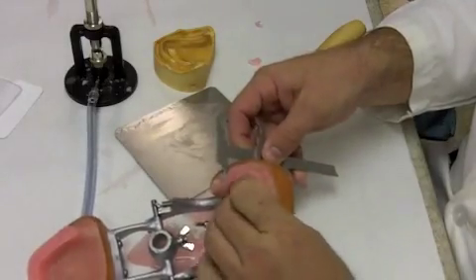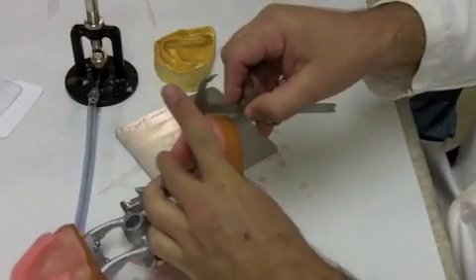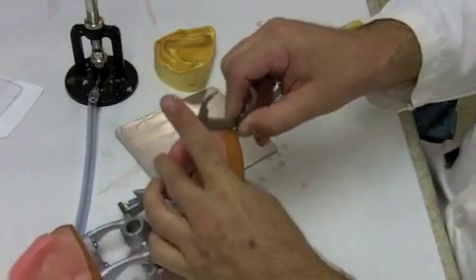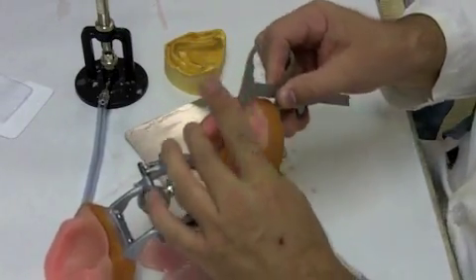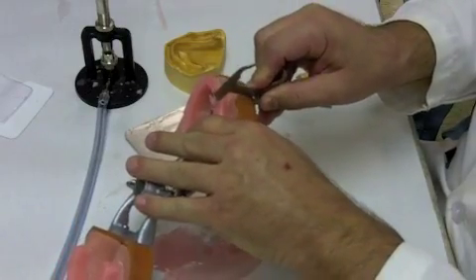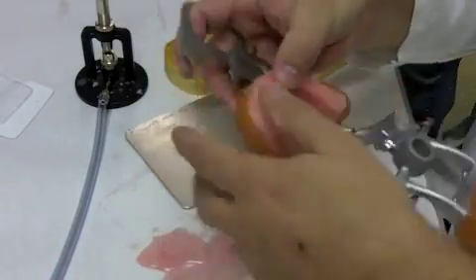So again, if you have the wax warm enough, you set your Boley gauge at 28, and you go around, and sometimes if you just got a little bit of flash of wax that's left, you can actually carve that wax with your Boley gauge. Depends on how well your lock mechanism works on your Boley gauge.